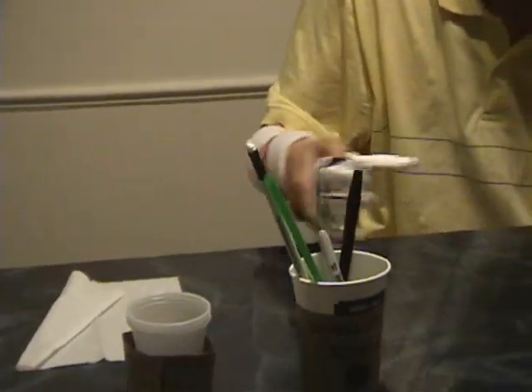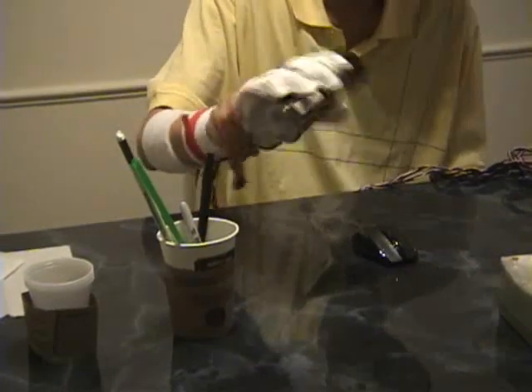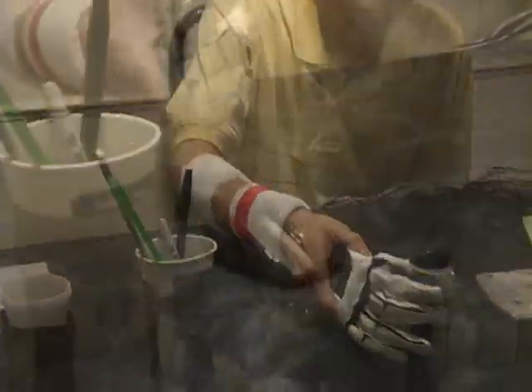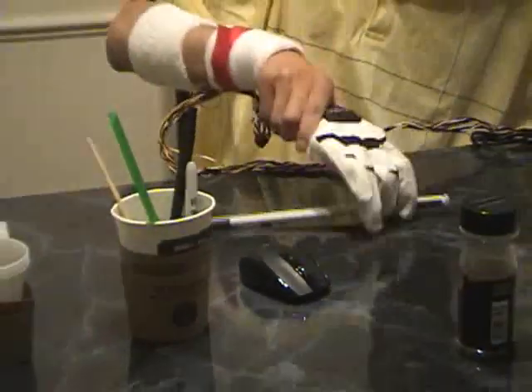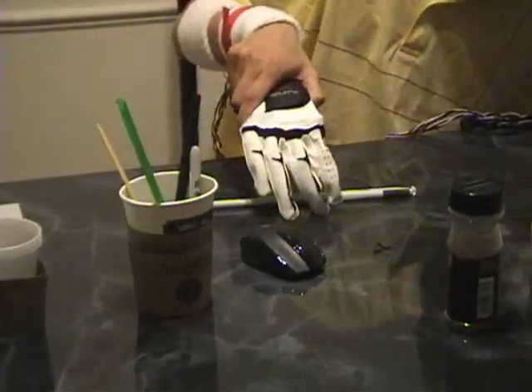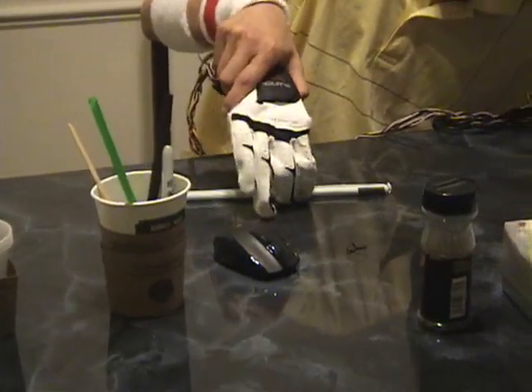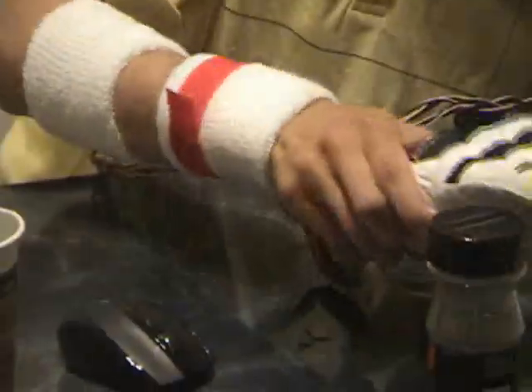And let's say you even handle things like pepper or salt. You can pick the straw up off the table. Dollar bill — there you go.